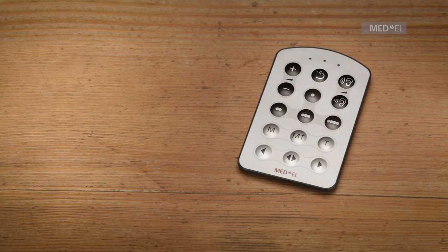If you press any key and see the red indicator light on your fine-tuner flashing three times, the battery of your fine-tuner needs to be replaced.